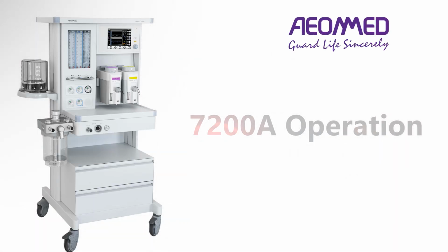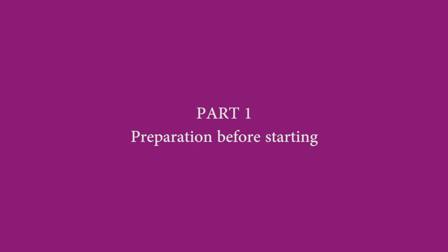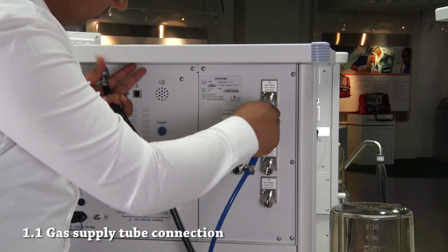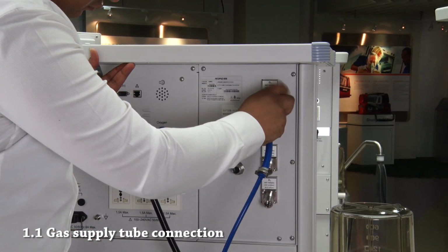This video is to show you how to operate and calibrate this machine. Part 1. Preparation before starting. Connect oxygen and air gas supply tubes to anesthesia machine.